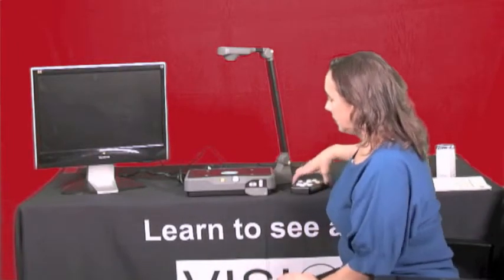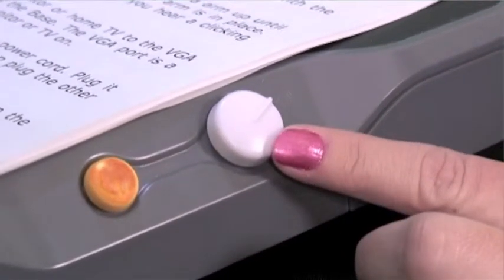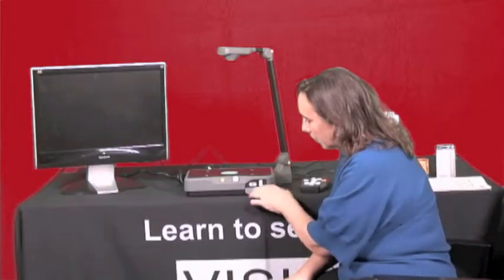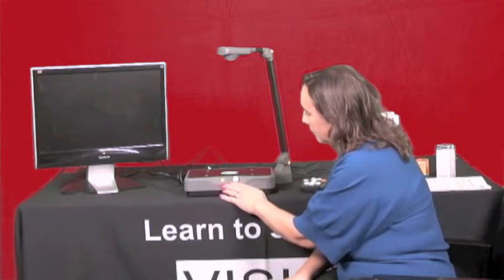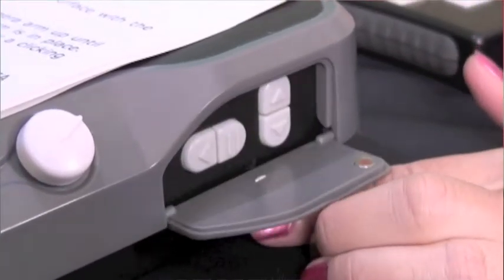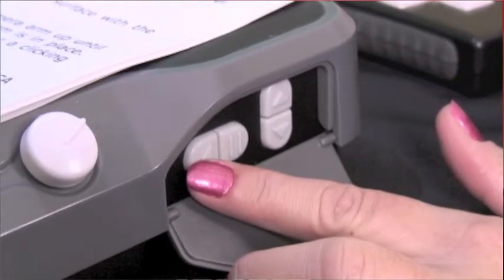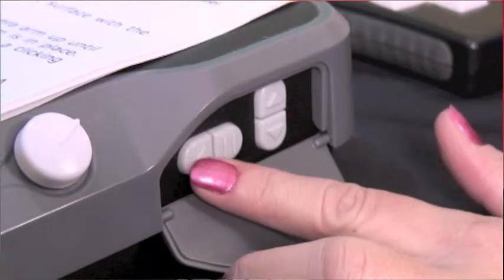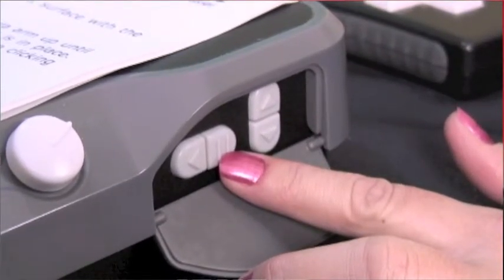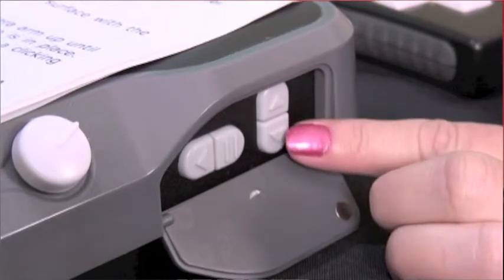In the front you've got your remote plugged in, and there are two primary buttons. To the left is your on/off button and to the right is volume. There's also a little door — to the right of the on/off and volume buttons there's a thin horizontal line that you can feel. When you press down on that line it opens up the door. In that door we've got some extra buttons: all the way to the left is a button to back up in the text, next over is the pause button, and closest to me are two buttons one on top of the other that speed up and slow down the reading rate.